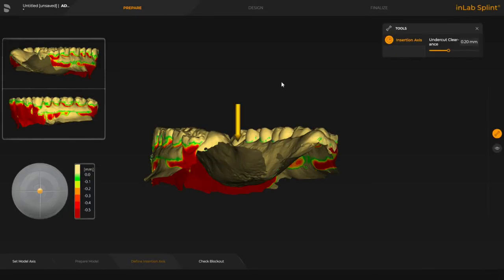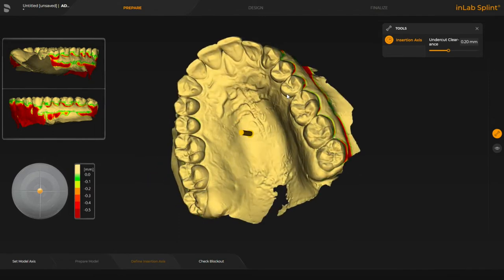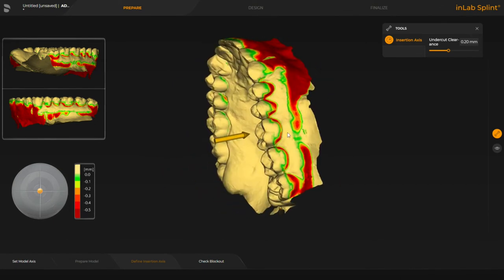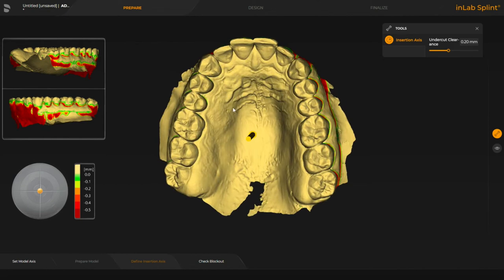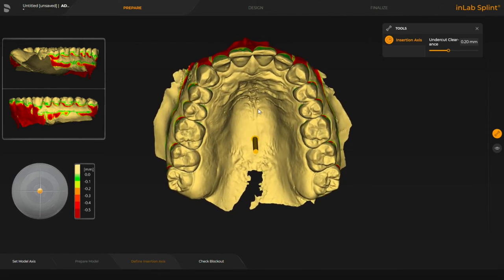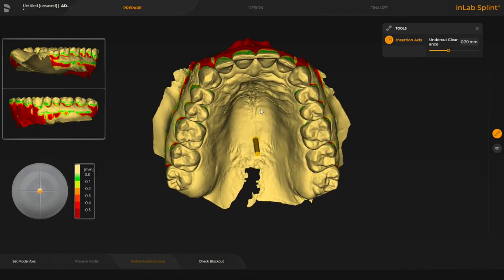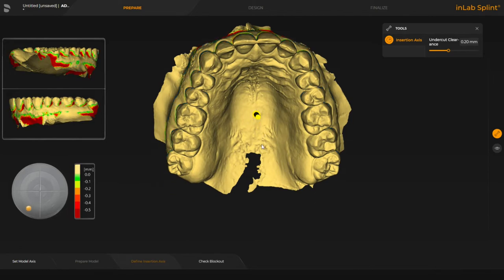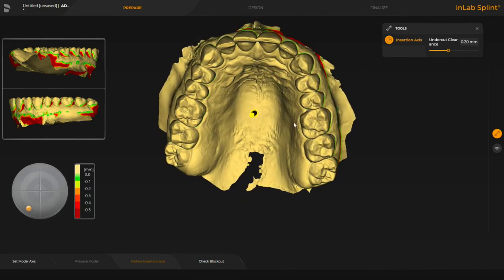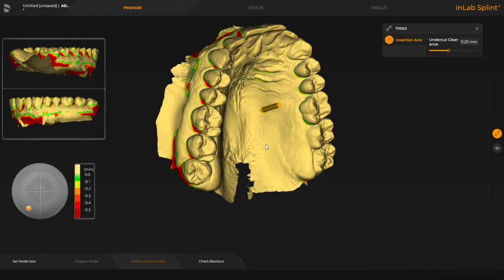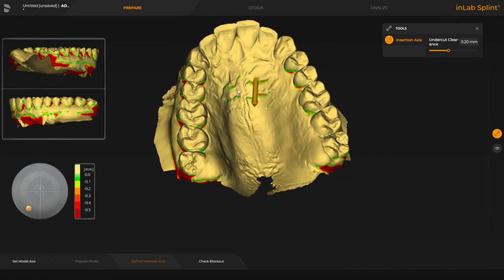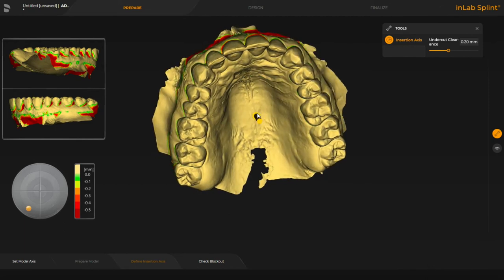You can see it's already started this process and I'm just going to rotate here so we can see. Similar to the other programs we've shown for designing a splint, it goes straight down from the occlusion. For me personally I like to tilt this so it takes a little bit more of the undercut away from the buccal side. We're going to manually move this little joystick direction arrow to select the undercut — it's a really nice way of controlling it because you can make very minor adjustments and see the effect straight away.